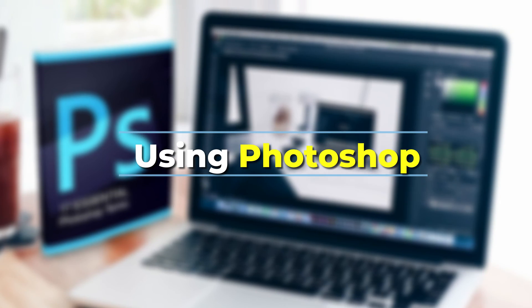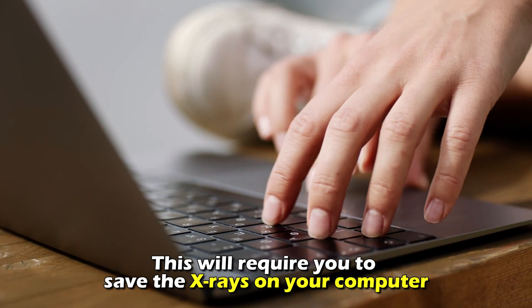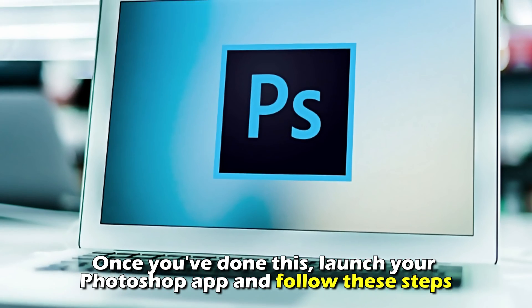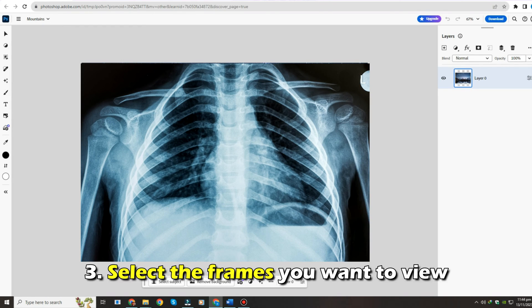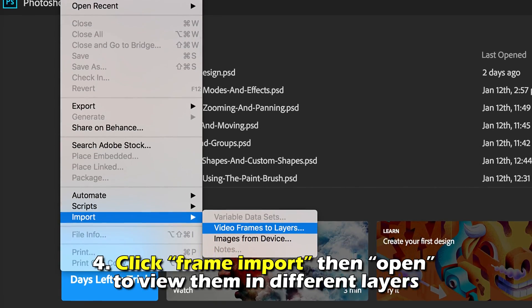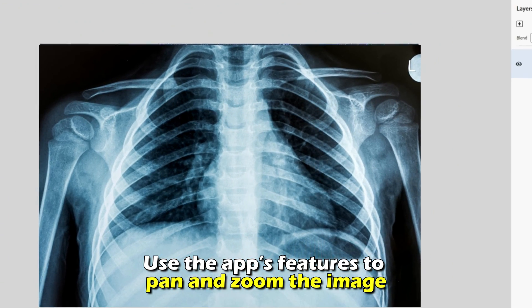Using Photoshop: You can also view the images in Photoshop. This will require you to save the x-rays on your computer first. Once you've done this, launch your Photoshop app and follow these steps: under File, select Open. Select your x-ray, then click Open. Select the frames you want to view, click Frame Import, then Open to view them in different layers. Use the app's features to pan and zoom the image.